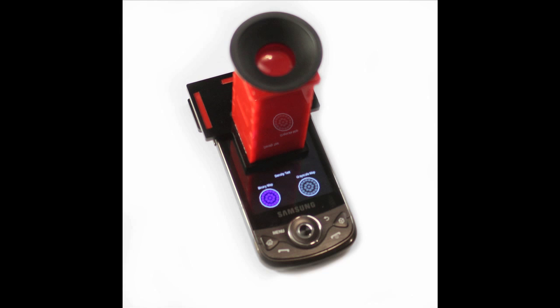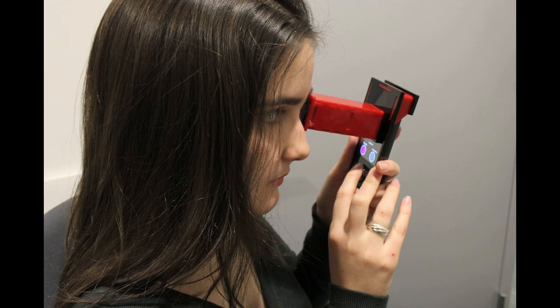We propose Catra, a new solution to detect and quantify cataracts with a compact eyepiece attached to a cell phone. With no moving parts and built from off-the-shelf components, our solution is well-suited for the developing world.